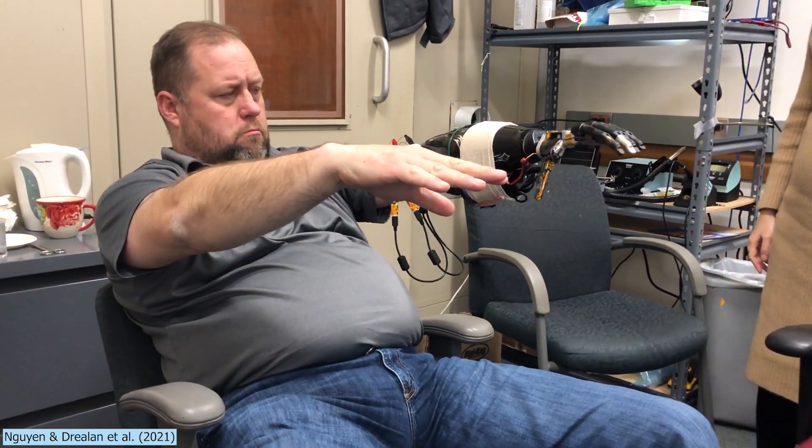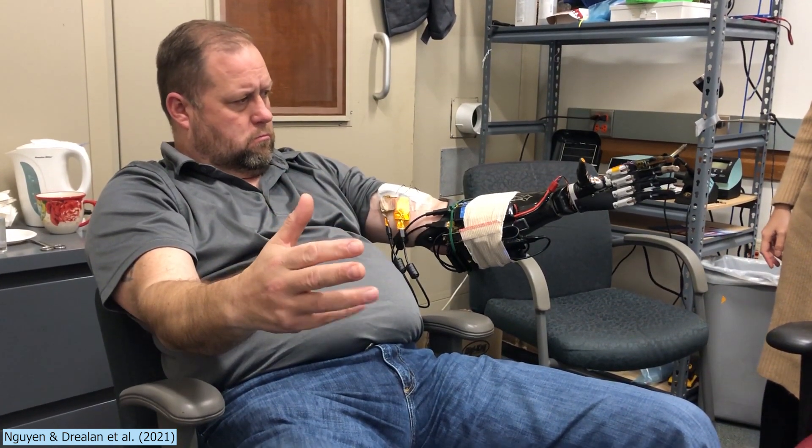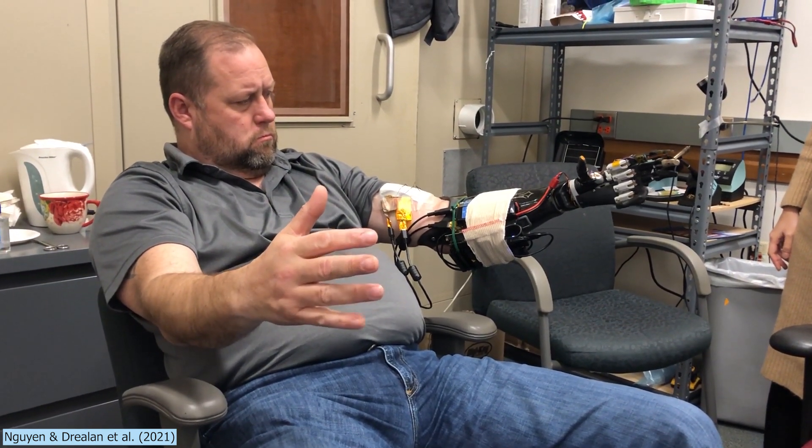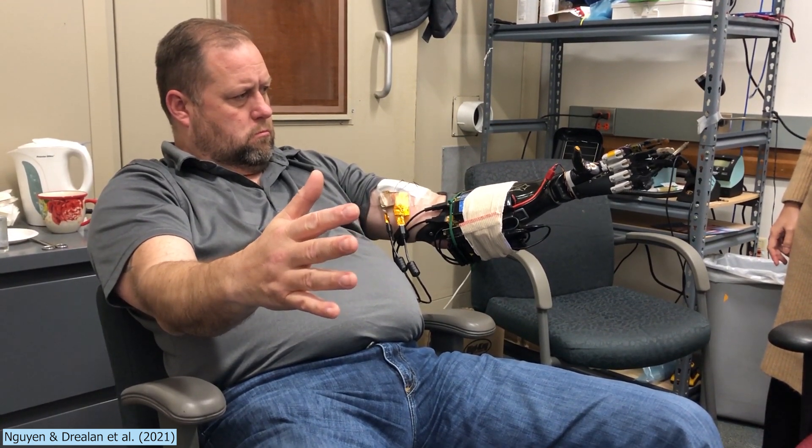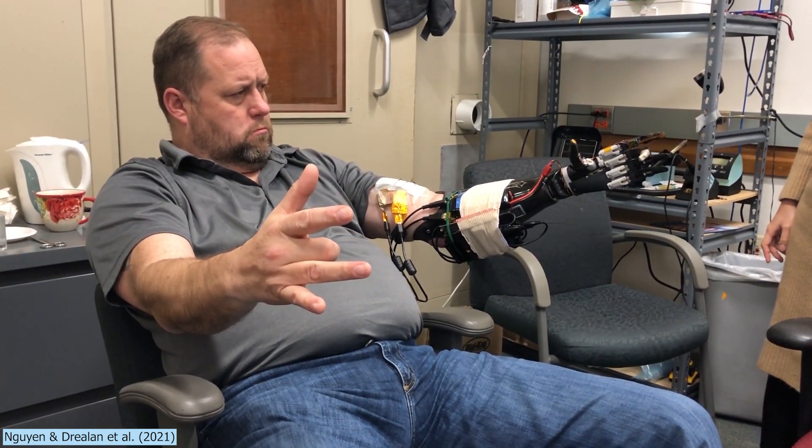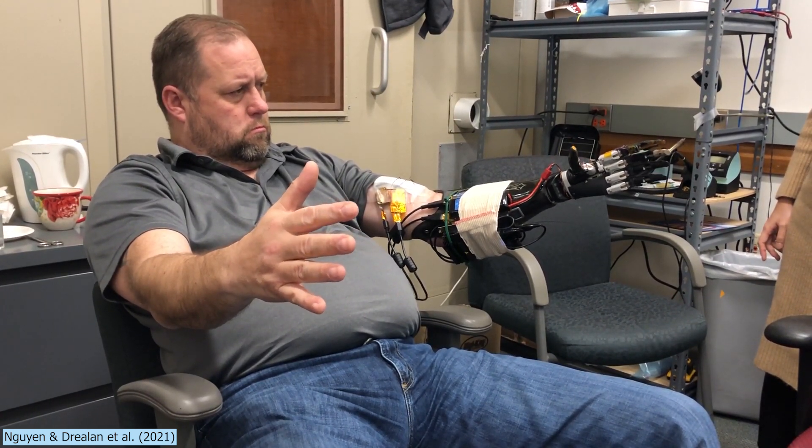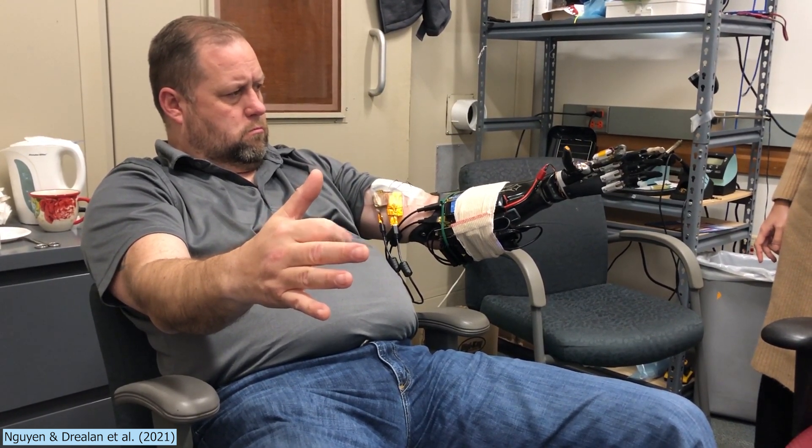An arm amputee who has lost his hand for 14 years can move its cyborg fingers just like a normal hand. This work shows that the deployment of deep neural network applications embedded directly on wearable biomedical devices is first possible but also extremely powerful.